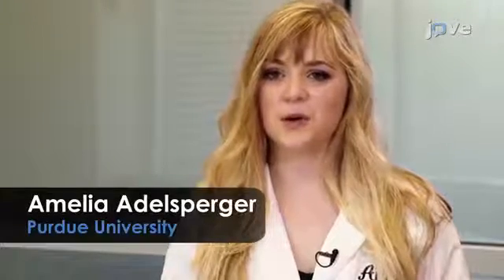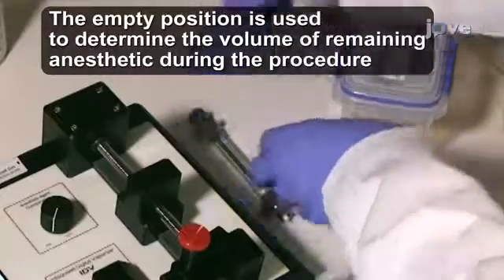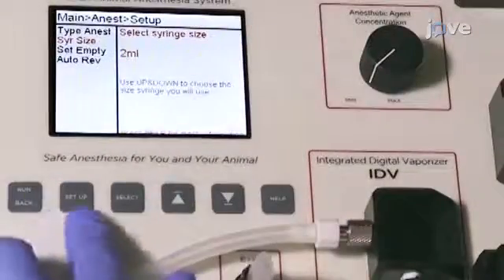It is important to use the appropriately sized syringe for your animal and length of procedure. This system is compatible with 2, 5, and 10 milliliter syringes to accommodate a variety of applications. After selecting the syringe size, set the empty position of the syringe.